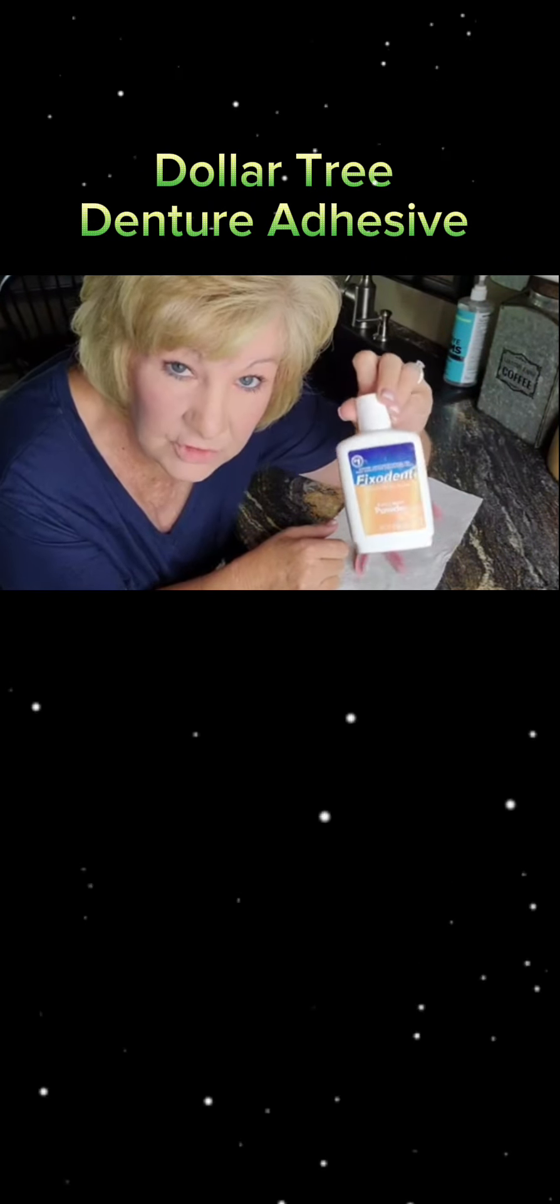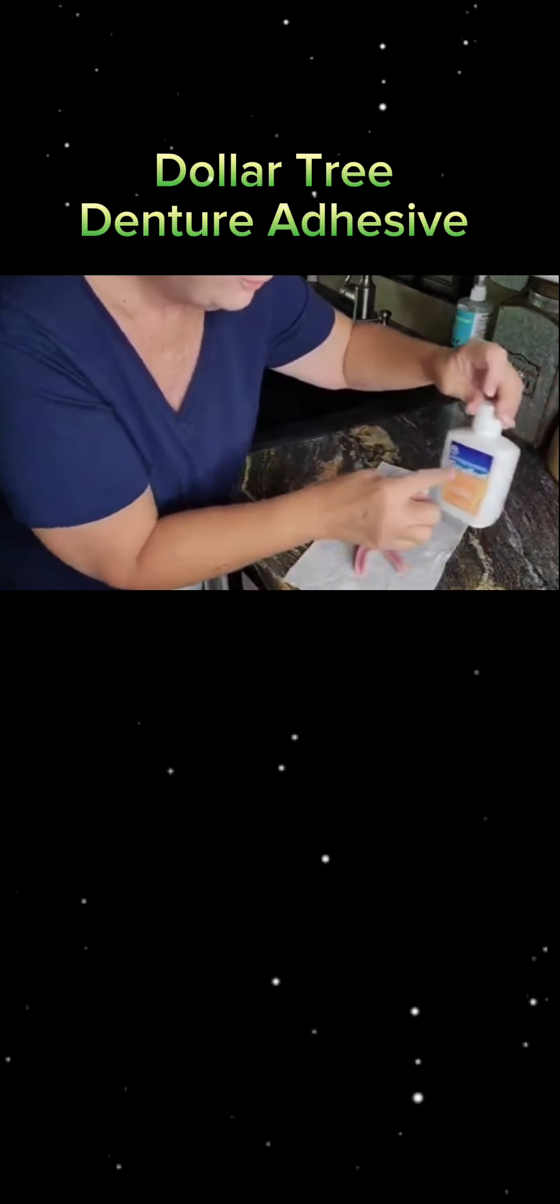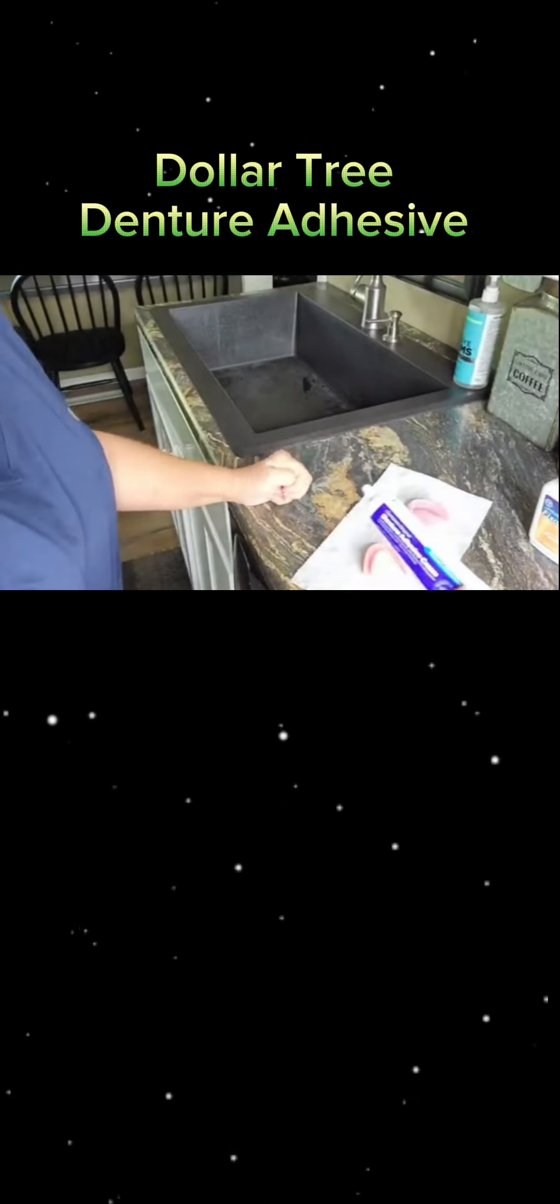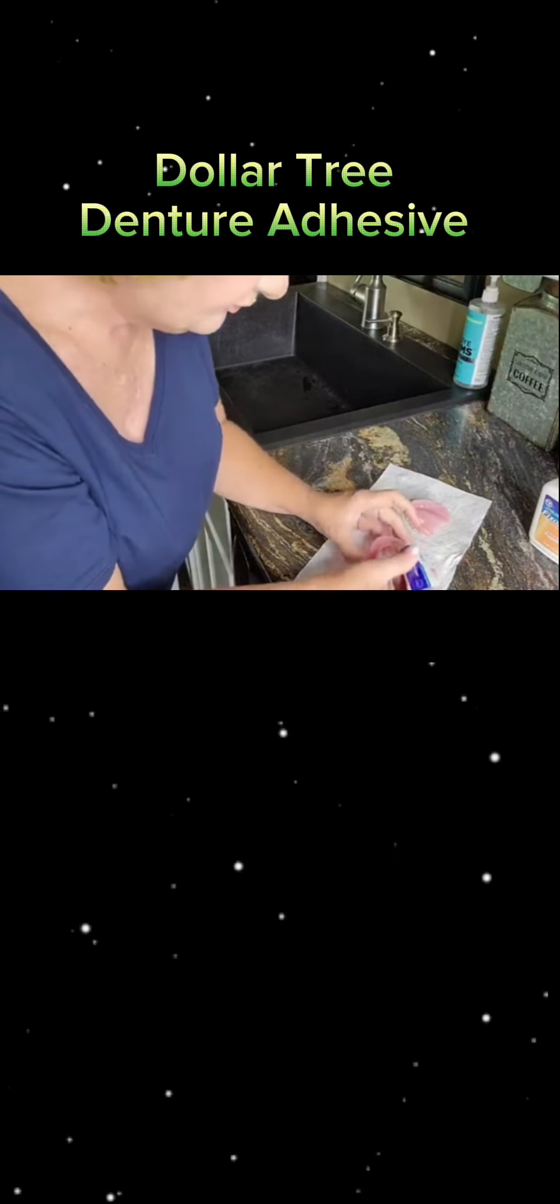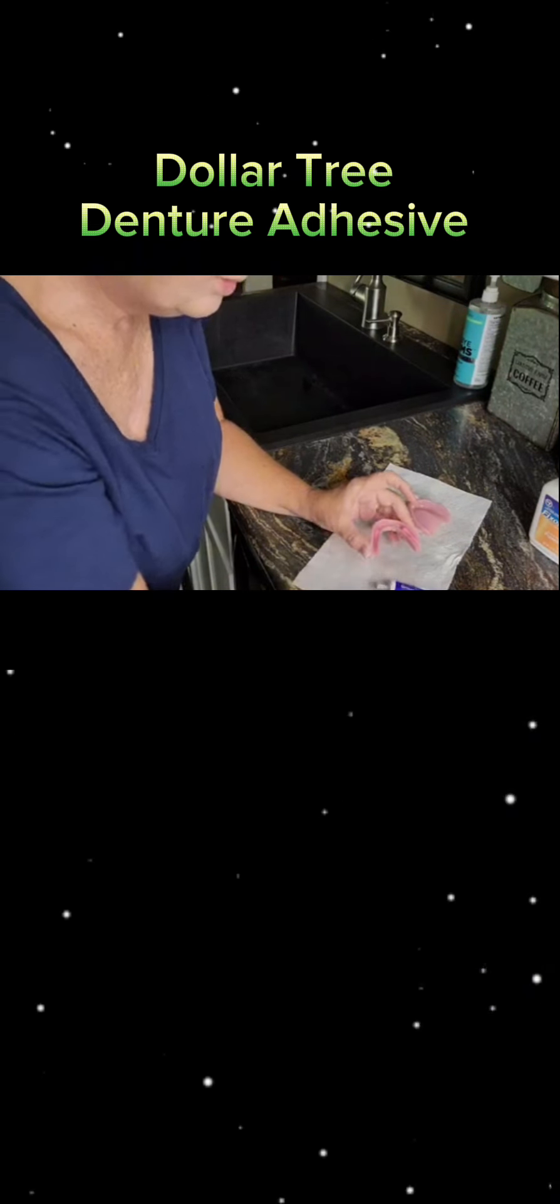It works, so put that on top of any denture adhesive. But right now we're going to go with just this alone because I want to see how it holds. I'm going to show you how I'm going to put it on here.